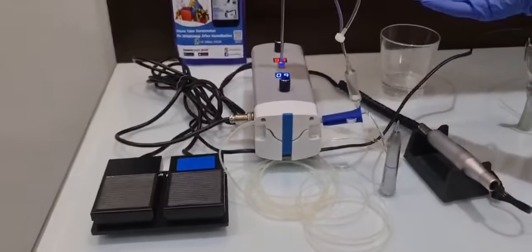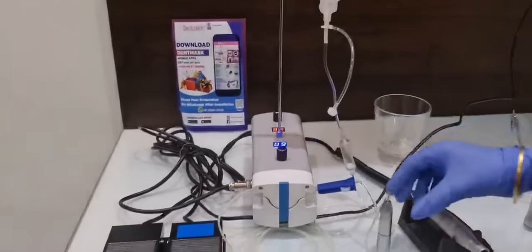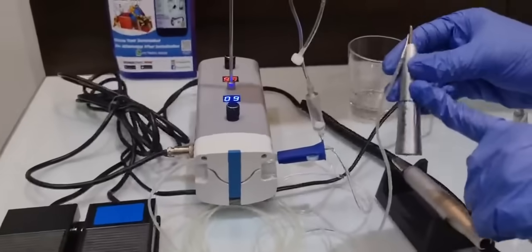Now our tubing is secured with the saline. Let's just start with this. This tubing is attached to your handpiece.